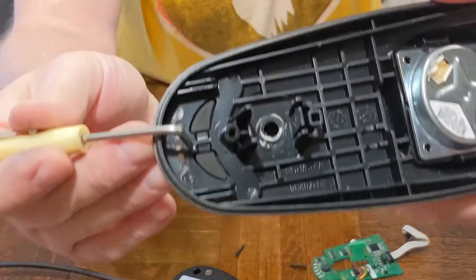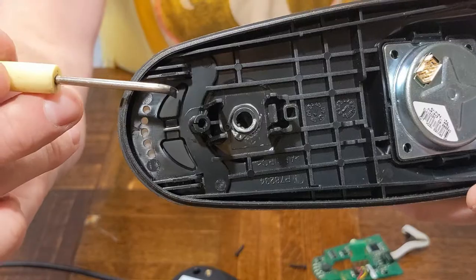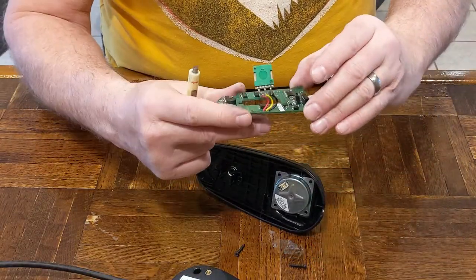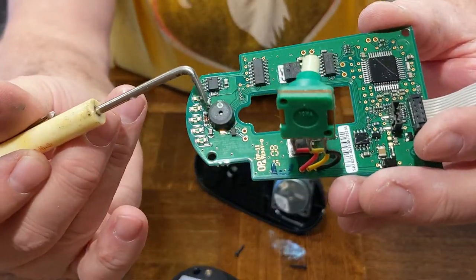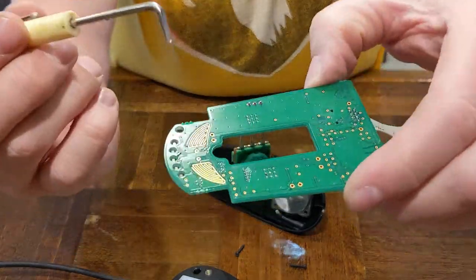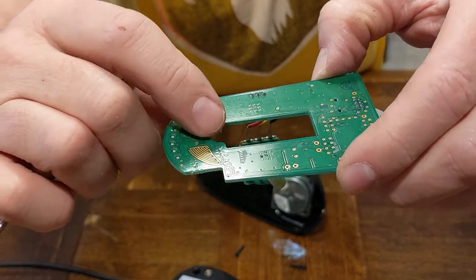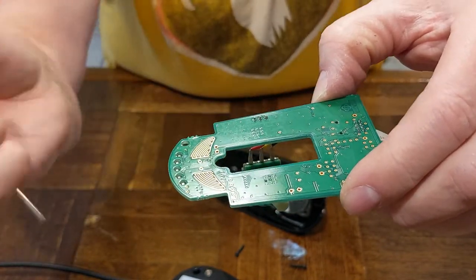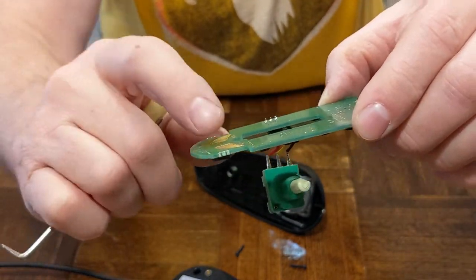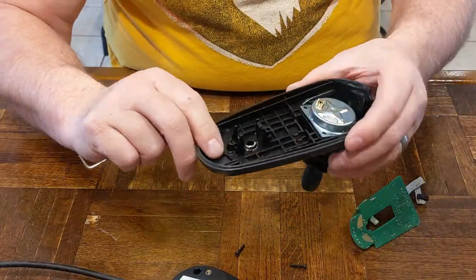Right here are the two buttons — this one is the power on/off and this one is the horn button, and this is the horn right there. Underneath here are two arrays of sensors: when you short these out it completes the path and causes it to turn on or off, or blows the horn. I'm going to clean these contacts and the switch contacts.